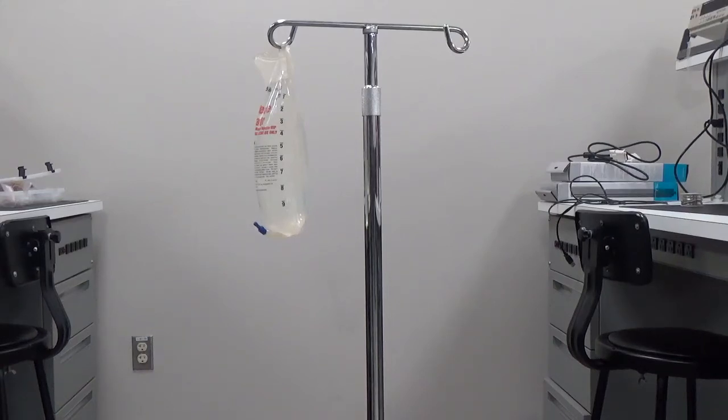For the next step we need to prime the primary infusion line. For this purpose I've already got the sterile water hanging from the rack in front of you.